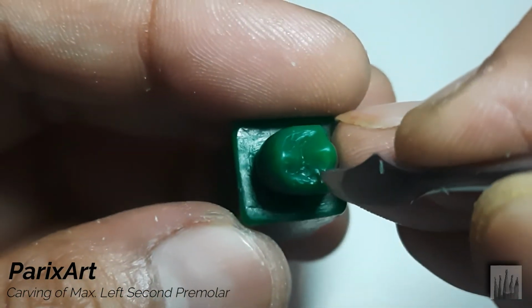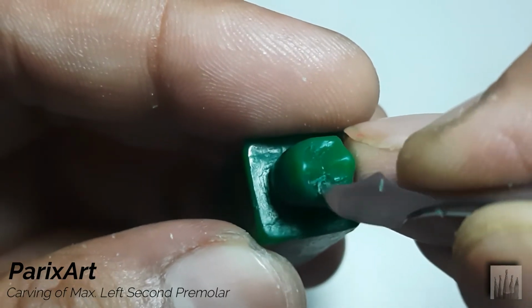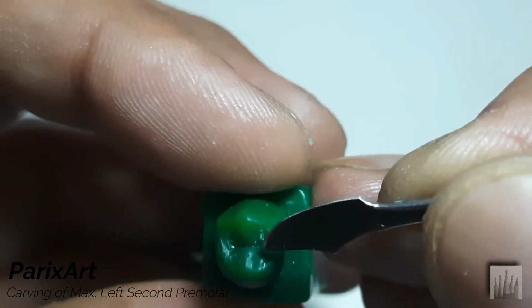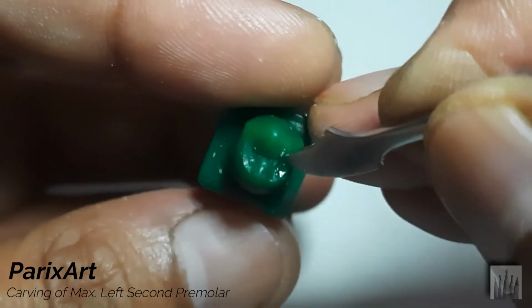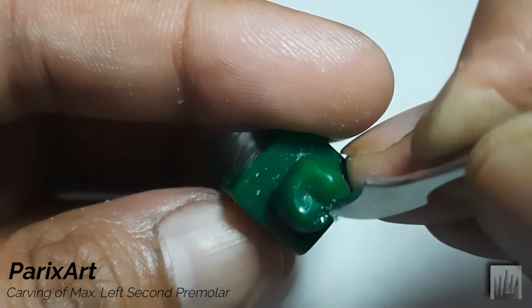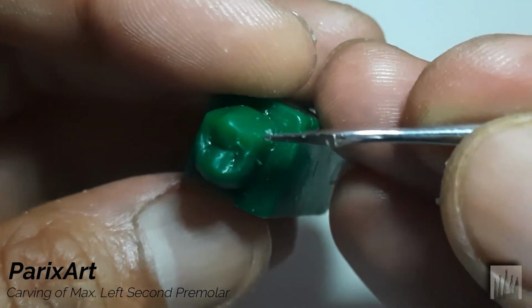Continue with the same movements. Now carve the outer incline to develop the edge of the marginal ridge.